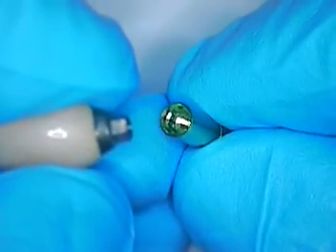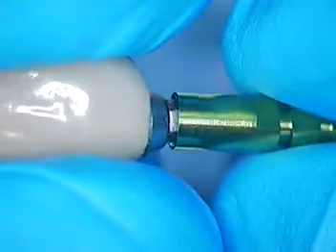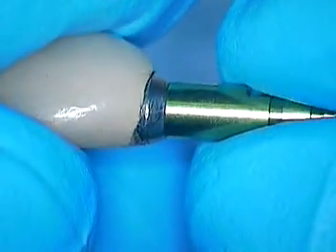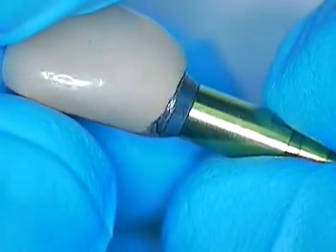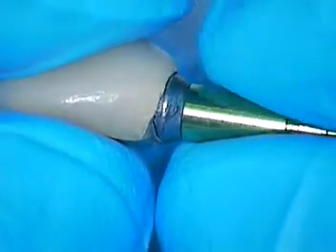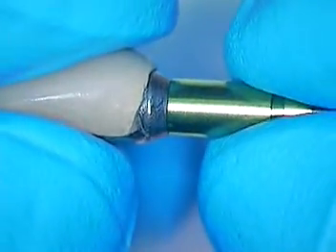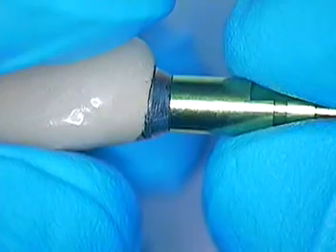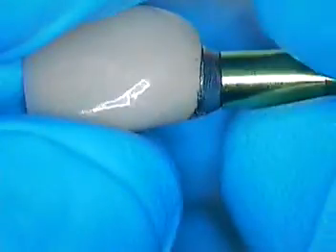This is the analog that you can see here. It is color-coded green. It is one of the smaller diameter implant abutments and you can see how nicely that fits together. I am going to show you the lingual of this. Several attempts were made to try to separate the abutment from the crown without having to produce any major heroics and the possibility of fracturing the porcelain.